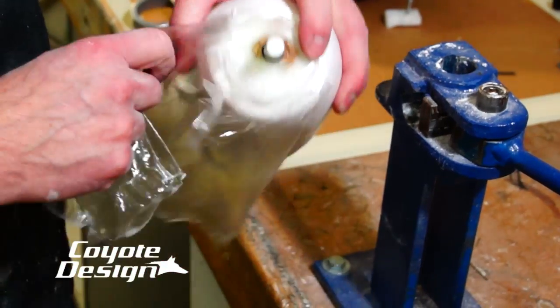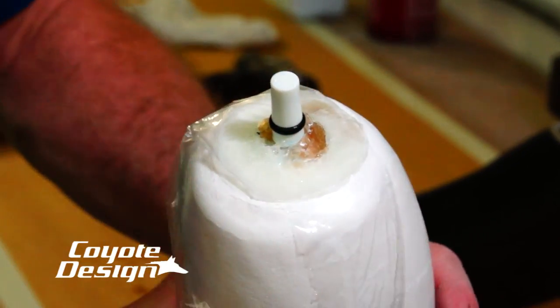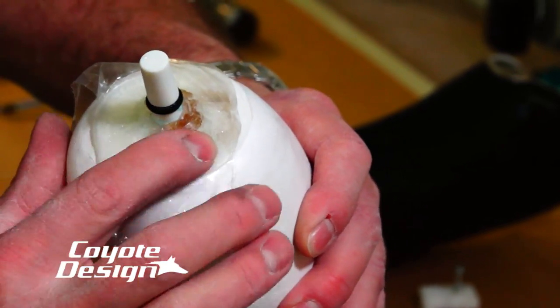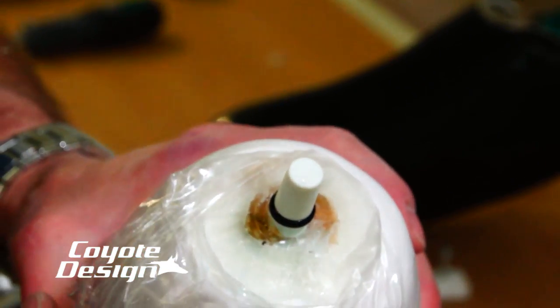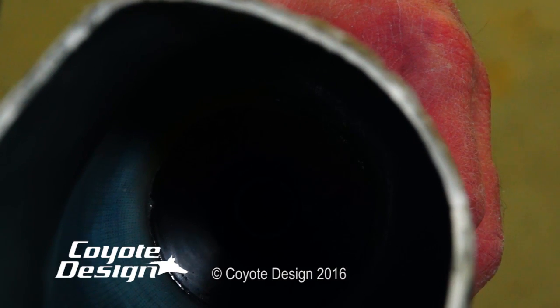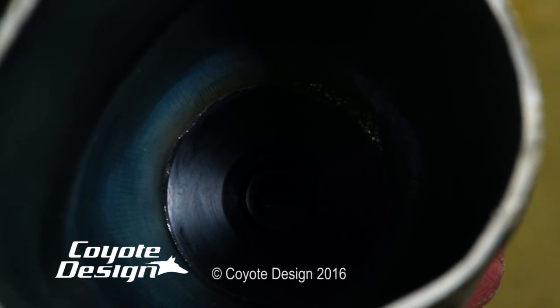So here's our PVA bag on the inside. You can see right where I glued that, up to the top of that bag — that whole thing is in there. That feels to me like I didn't do that good of a job gluing it on, but that's probably resin right there — and I know that is. It came right in and that O-ring stopped it from going into my chamber. It worked perfect. We look down inside of our socket and that pulls right out of there just like a million bucks. You can see how that pulled out of there — the Coyote Quick doesn't stick to the lock, it just comes out nice and clean. It's all stuck on the bag. We have no resin down inside that lock chamber.